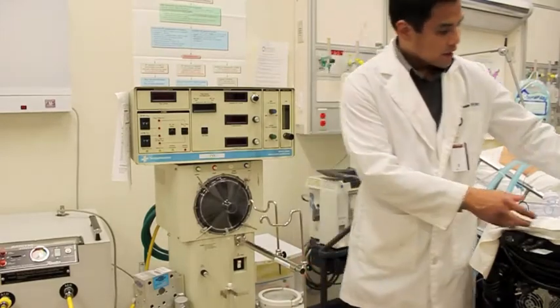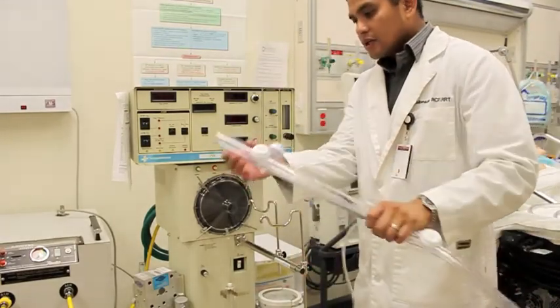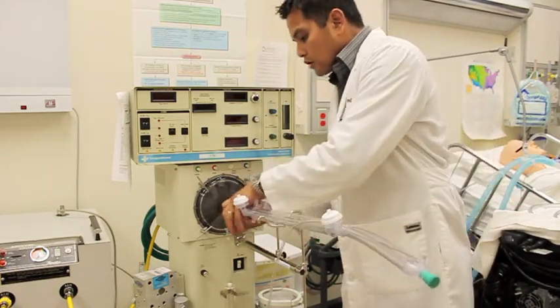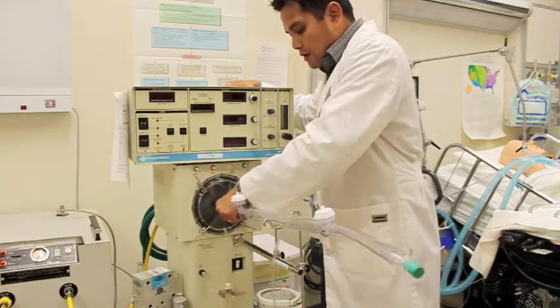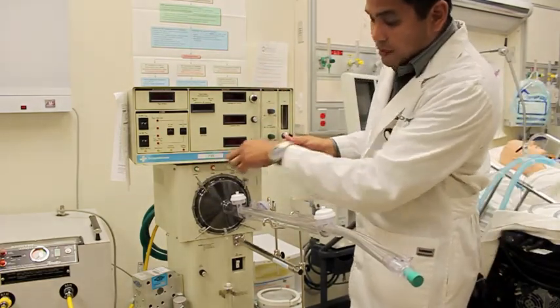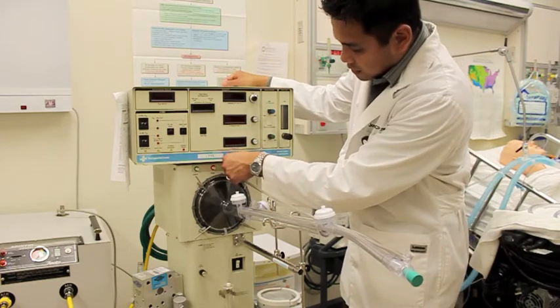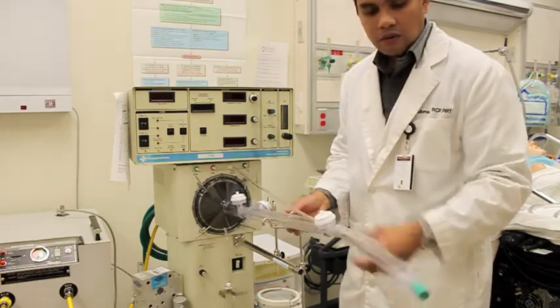The next thing I want to connect is our rigid circuit here, and basically this part here, the big opening, will connect to the diaphragm, and it's kind of hard to put in place, so you kind of just have to work it in. Okay, after that's in, this is the airway pressure line, and the connections for the pressure lines are basically color-coded, so it's very hard to make a mistake here. Okay, you just connect this and that part is now ready to go.